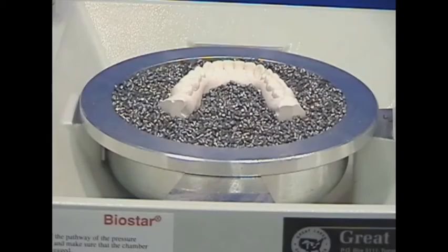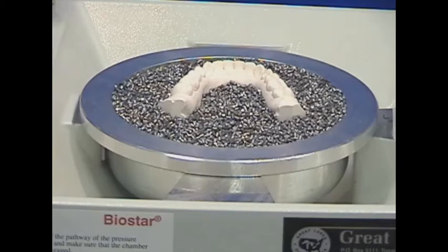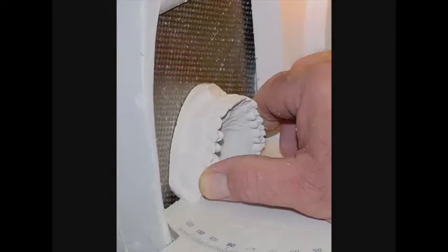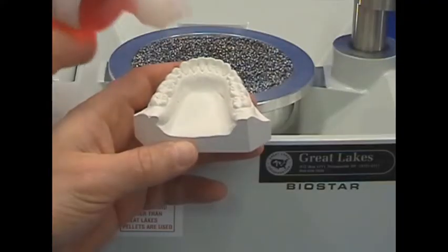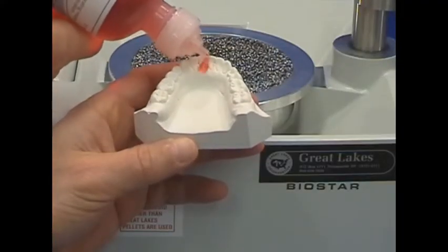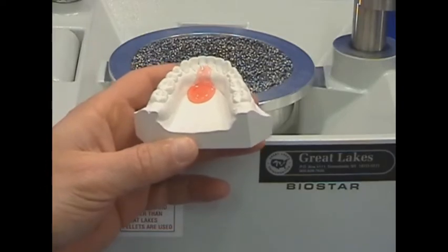The invisible retainer can be made using the pellet or platform methods. When using the platform method, the model base should be reduced using a plaster trimmer. This will limit the material stretch and thinning along unnecessary areas. Liquid separator is applied to the teeth and tissue areas of the model.